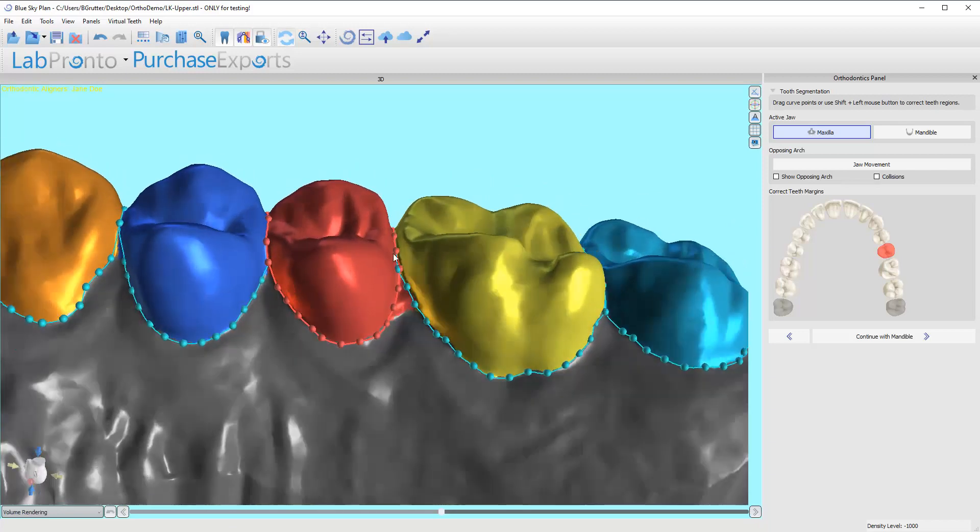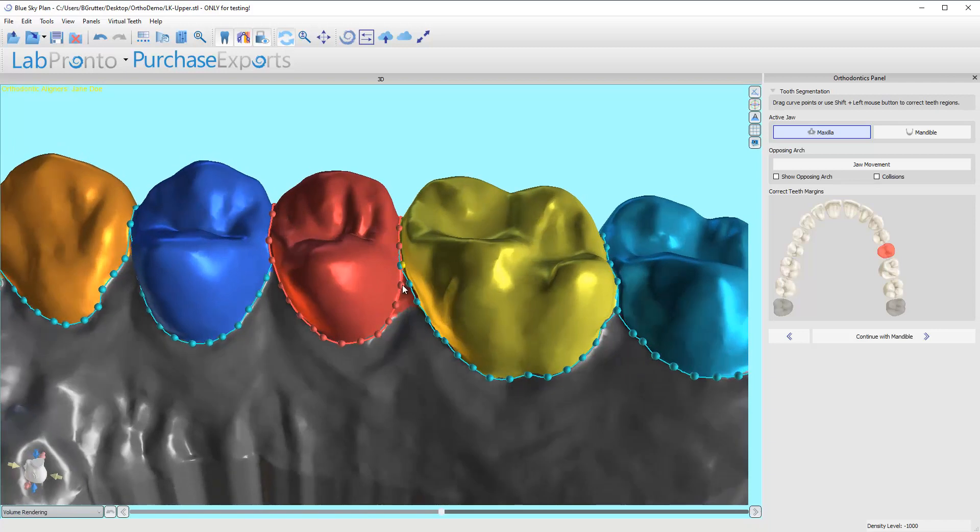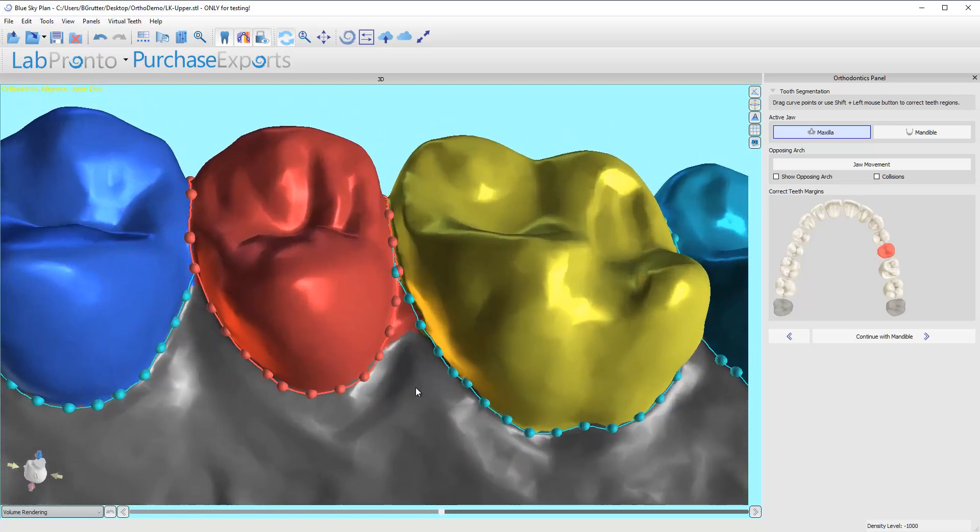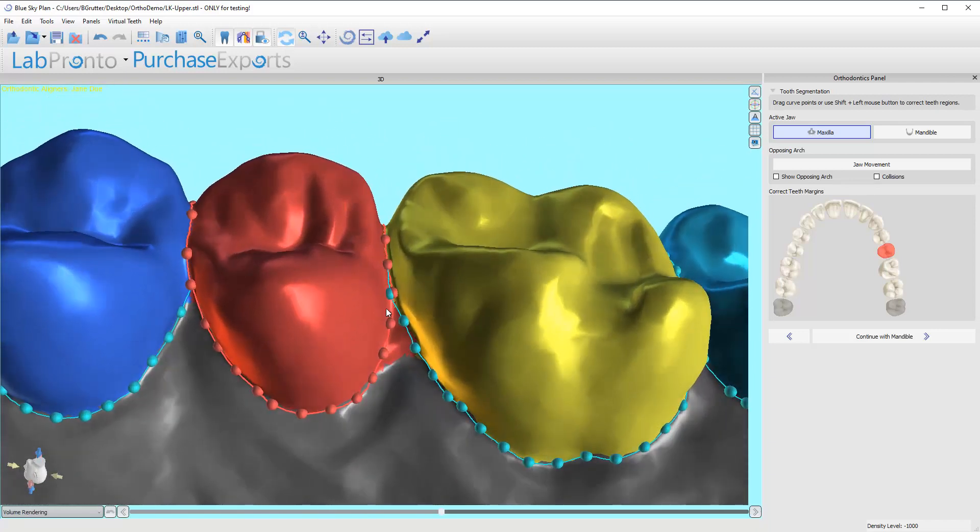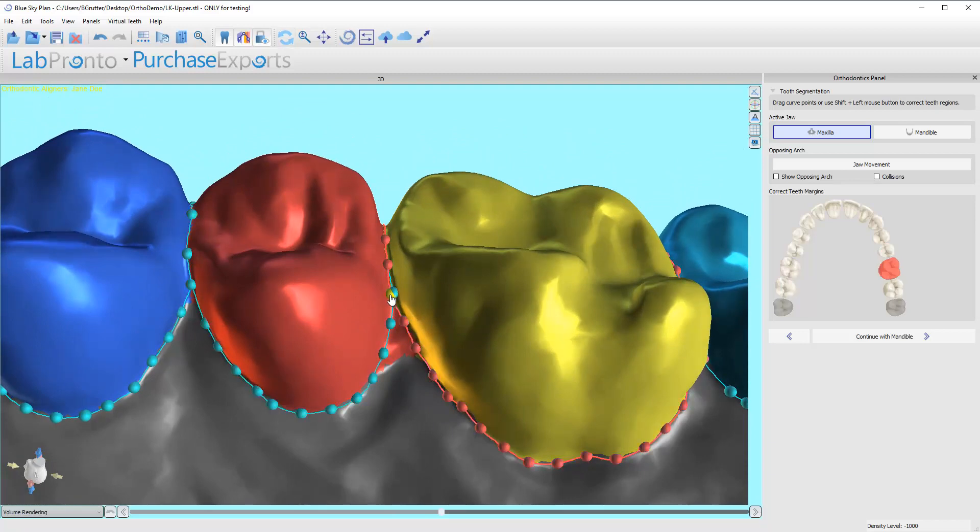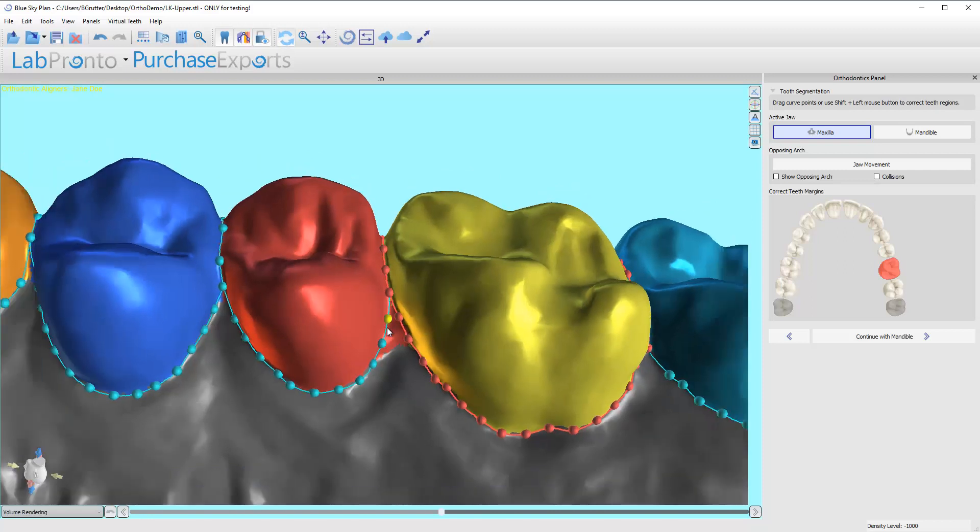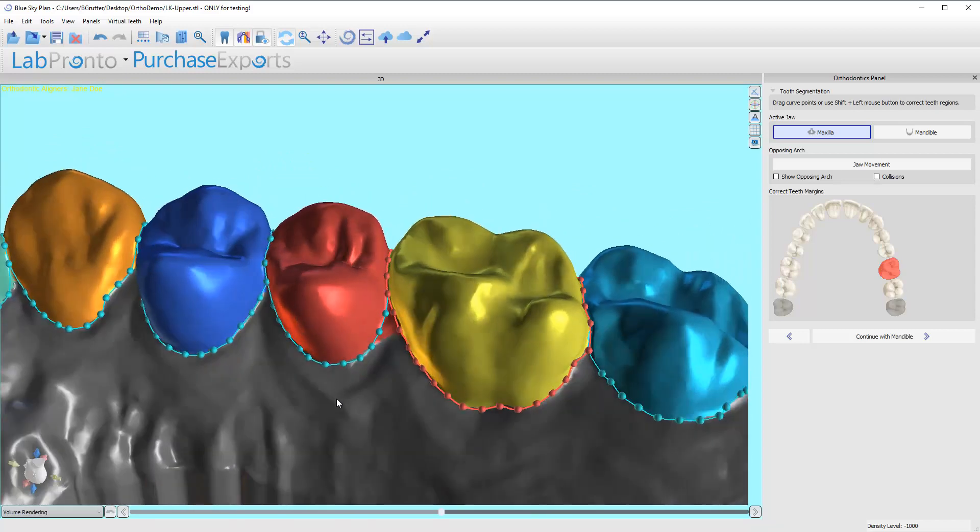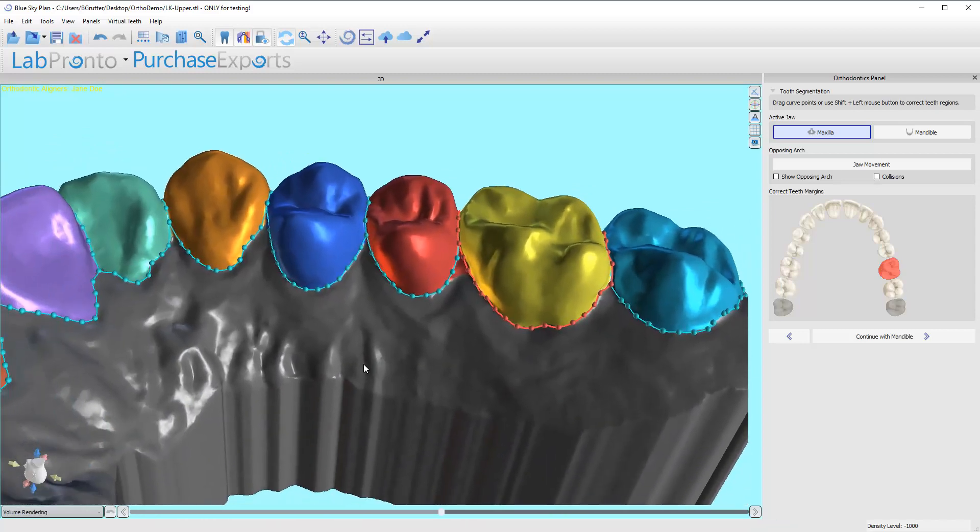Now I've got the line nice and well defined. In this case it did actually create two different lines that sort of overlap each other. If I just grab this node and set it right on top of this one, it becomes one. I could do that again with these two if I wanted, but that would actually make a worse proposal. So I'm not going to do that, but you can see how easy it was to fix that.